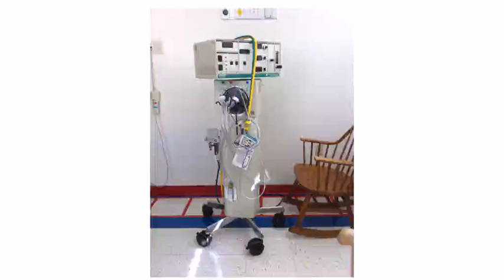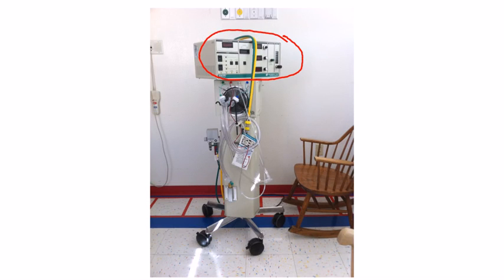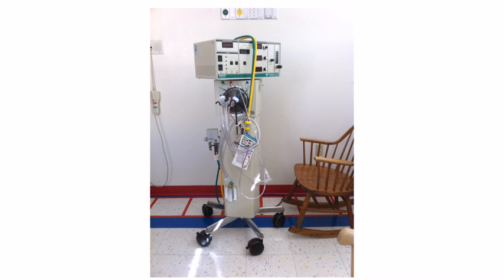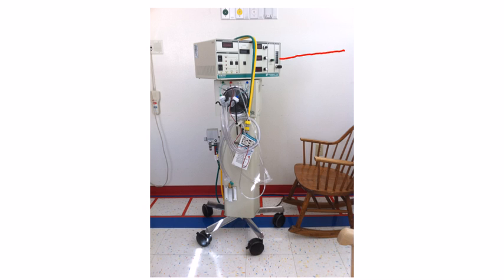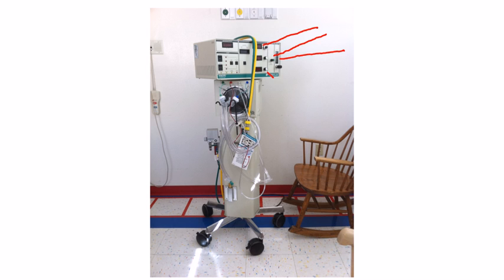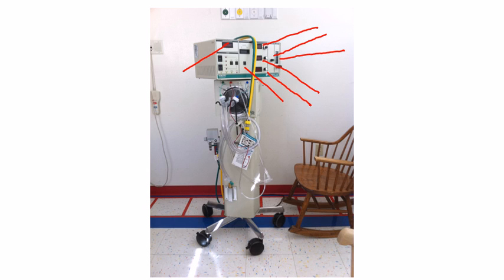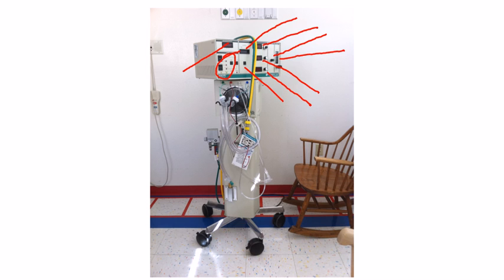On the last video I did on high frequency ventilation, we looked at this part here and a little of this part here, and we should have a pretty decent idea of what they do. Right here is your bias flow, here is my power, my mean airway pressure, my frequency, my percent I-time, there's my airway pressure readout, my start/stop, there's my piston level for zeroing, and my alarm interface.